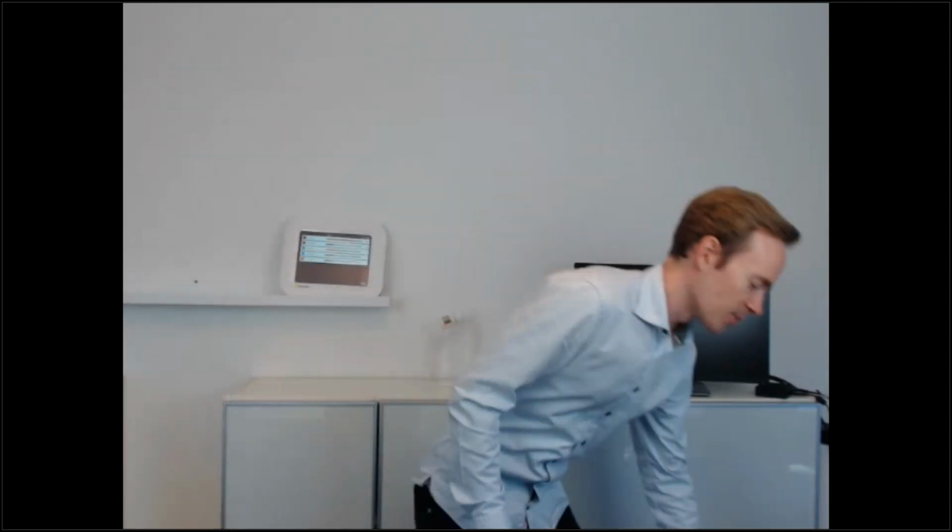But our dosimeter, let me pick it up again. It includes an accelerometer, and we use that to track any mechanical impact. So if it detects an impact, then it will momentarily shut off the measurements for just a second. So you wouldn't get any false data. And you might object that then it doesn't measure. That's correct. But we figured that if you drop it on the floor, then that measurement wouldn't be super accurate anyway. So we decided that that's a good compromise.